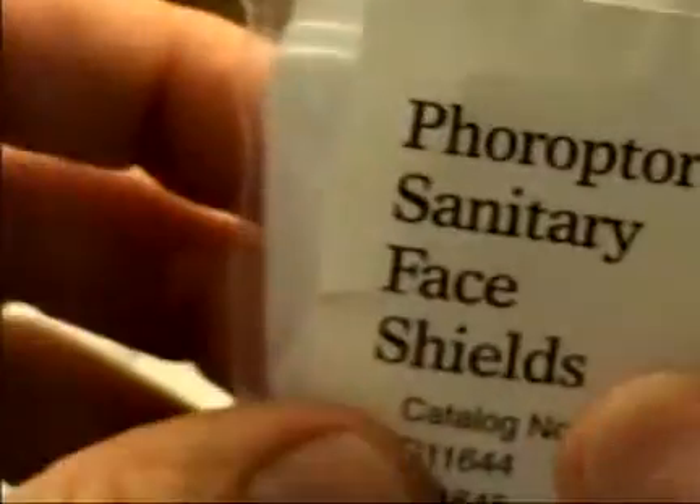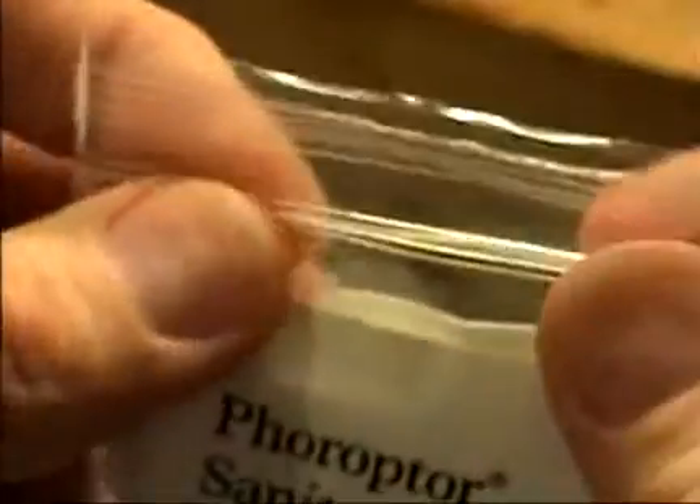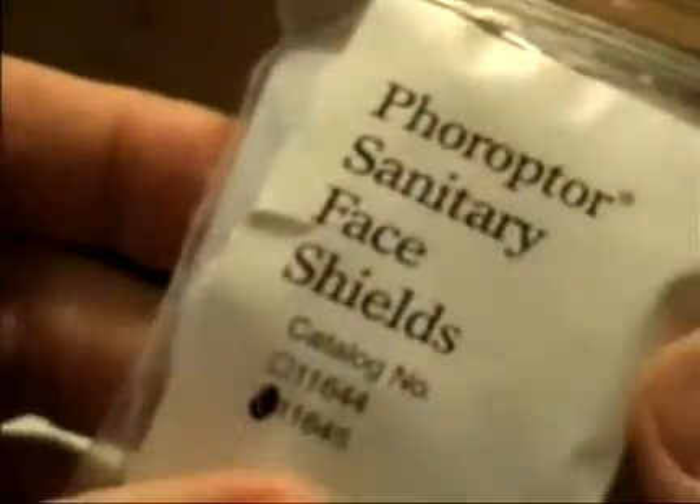But all you can buy is the latest version, which is again about 0.5 millimeter thick for most dimensions of the face shield.